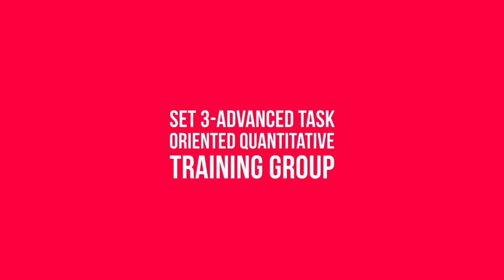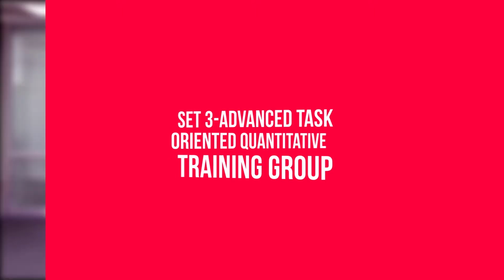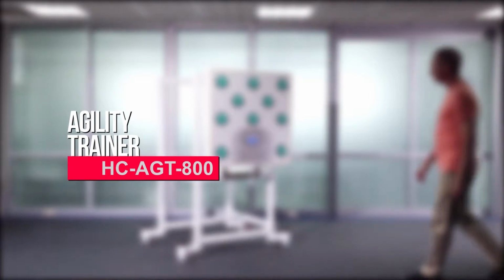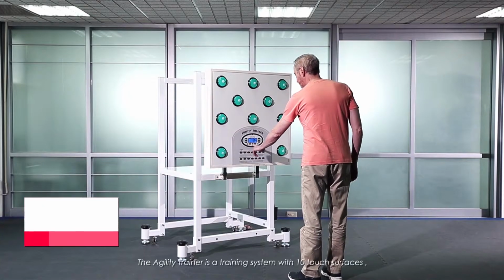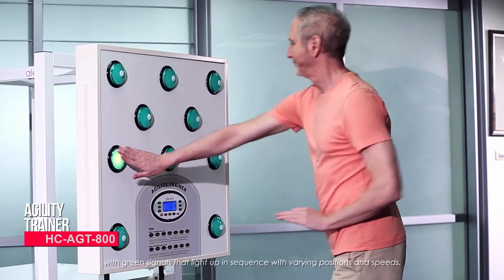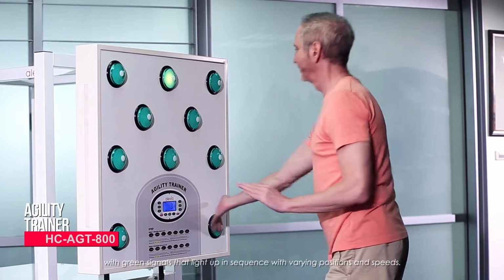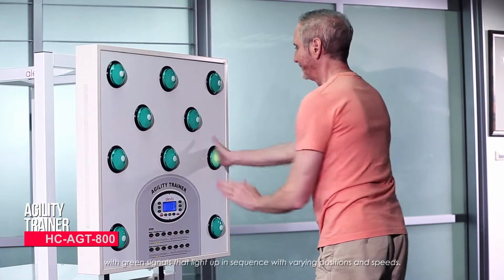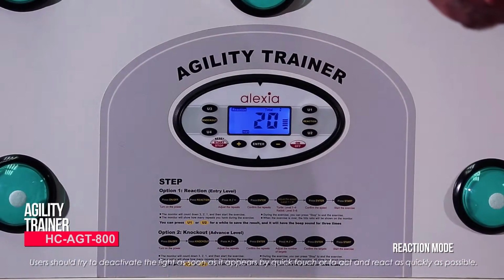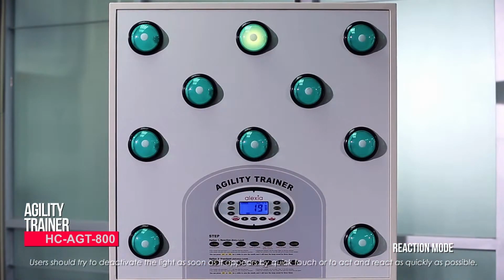Set 3. Advanced Task-Oriented Quantitative Training Group. Agility Trainer. The Agility Trainer is a training system with 10 touch surfaces with green signals that light up in sequence with varying positions and speeds. Users should try to deactivate the light as soon as it appears by quick touch, to act and react as quickly as possible.